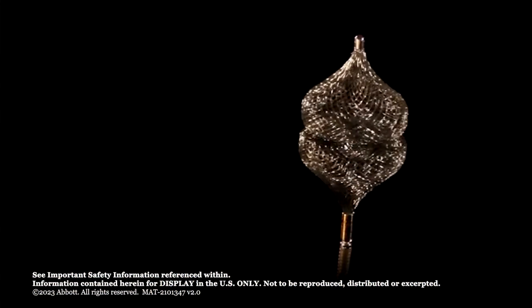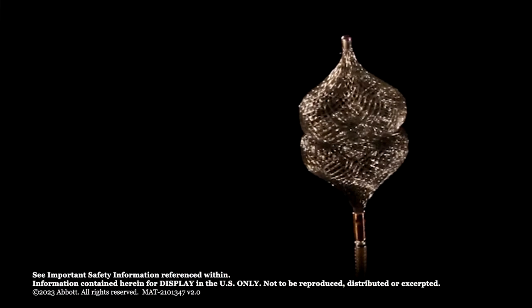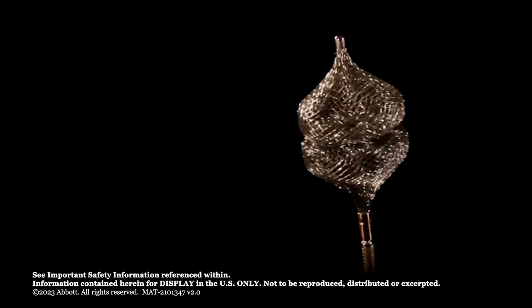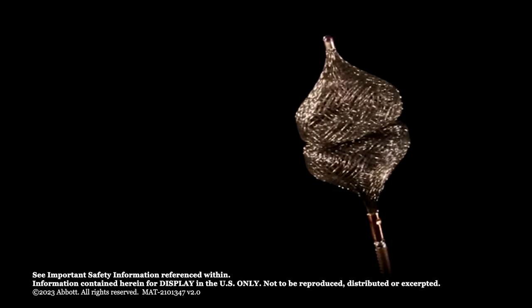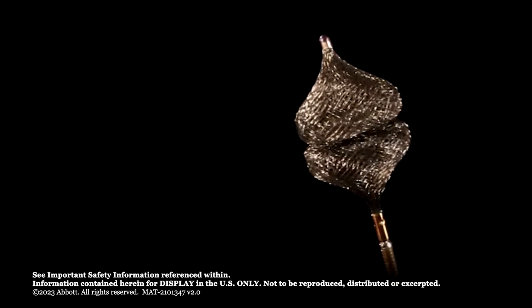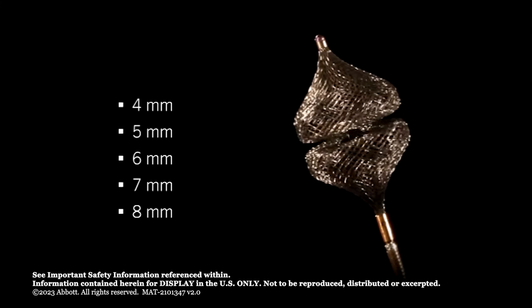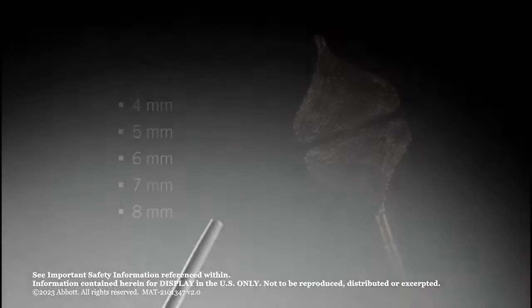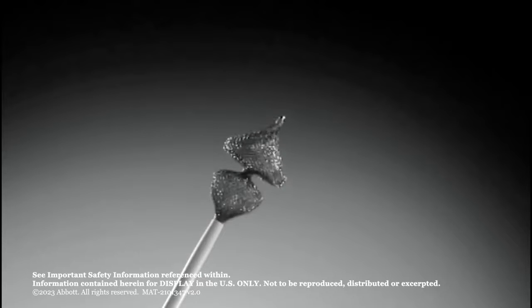The overall low profile of the device enables it to pass through an 038 diagnostic catheter for ease of use. The use of a diagnostic catheter also eliminates the need for catheter exchange. The Amplatzer Vascular Plug 4 is available in five sizes, represented by the diameter of the device. All sizes of the AVP-4 are delivered through a four or five French 038 guide wire compatible diagnostic catheter.